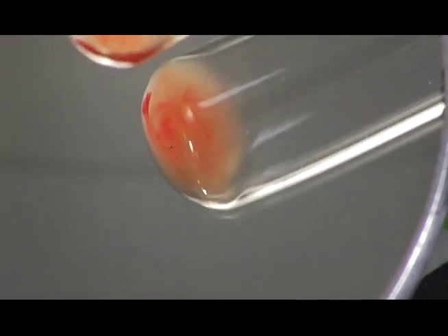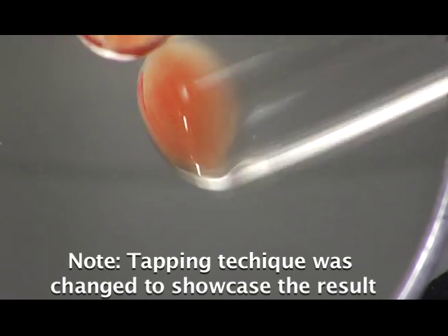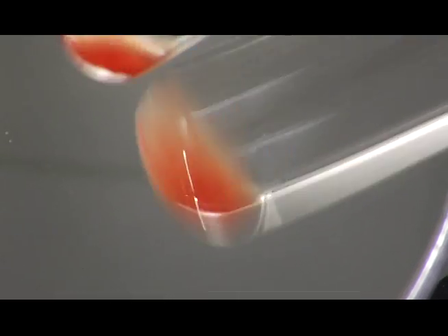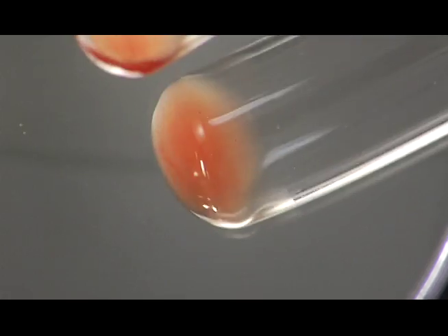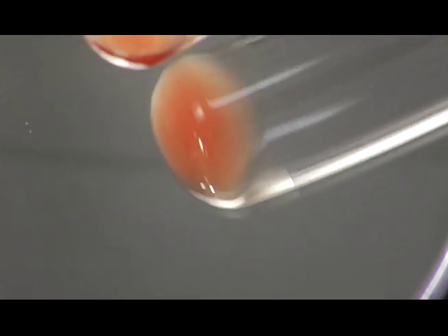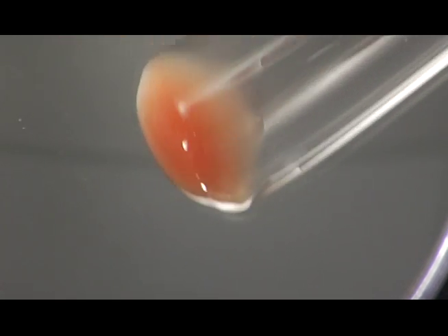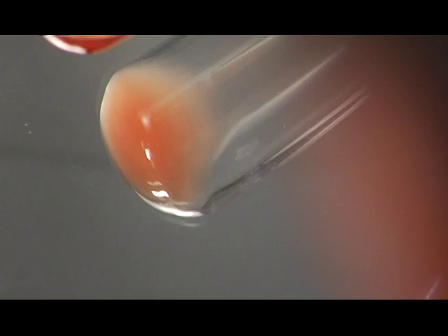I'm just going to change my technique a little bit to show you that a little easier. You can see the cells coming off the button here now, and just the saline swirling over the button. That's really what you want to have, is that continuous running of the saline over the button. Then when the cells are completely off, you can roll the reaction down into the tube. You can see again that it's a nice negative reaction here, no agglutinants.